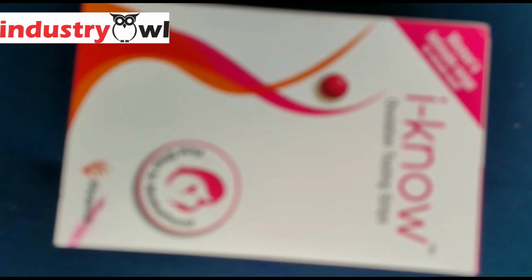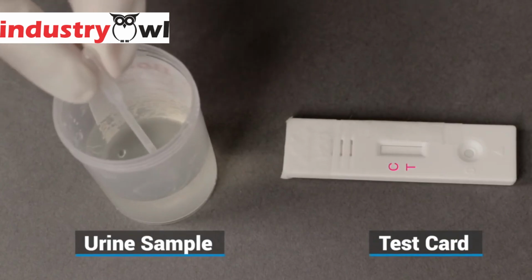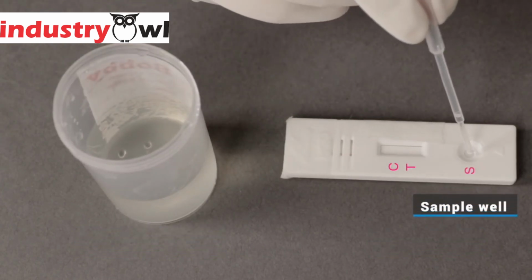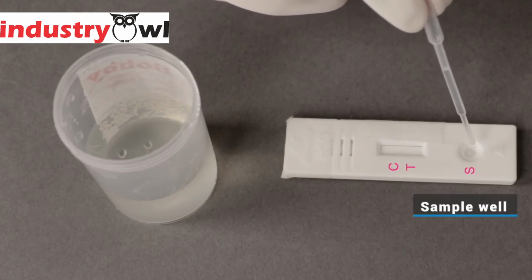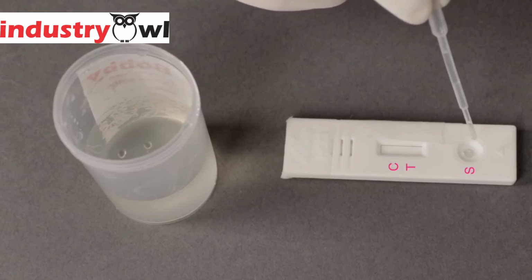How to use iKnow ovulation test strips. Calculate the date to start testing with iKnow. Refer to the package insert for detailed instructions. On the calculated day, put 3 drops of urine in the slot of the iKnow strip. Note, the best time to test is in the afternoon. Read the result within 5 minutes and discard the device.